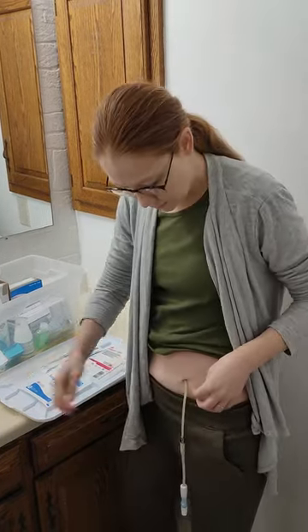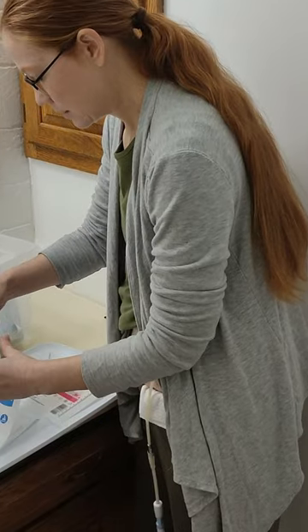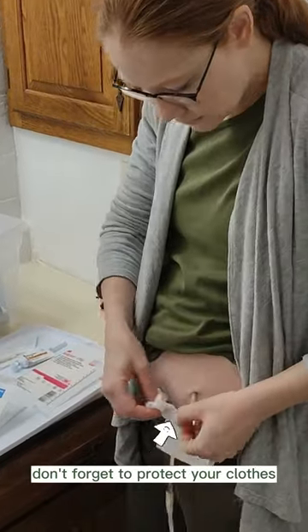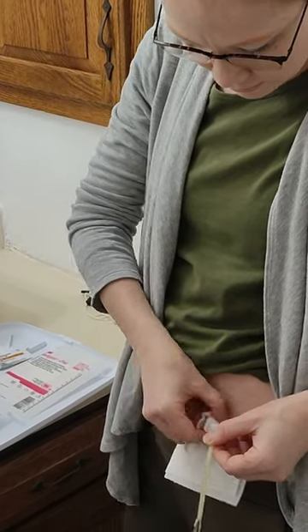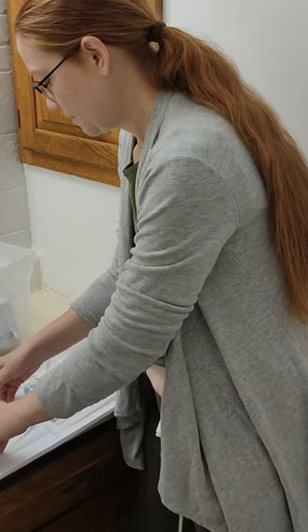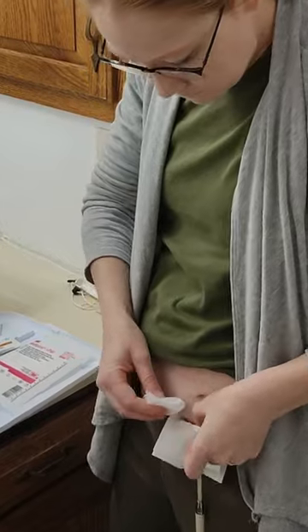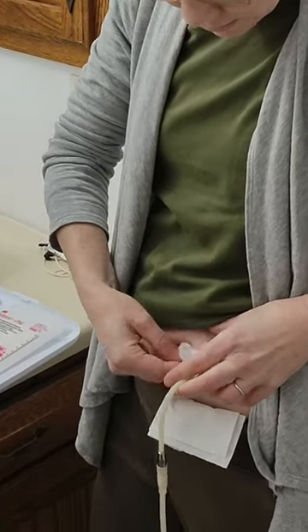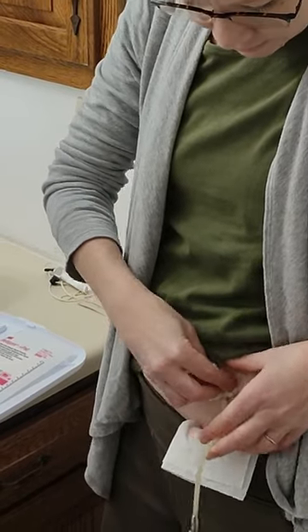I've been doing PD for about a year, so usually when you first get it it's gonna be red a little bit. I take the sponge and I wipe around the site. I go around the tubing, and I use both of the sponges. I kind of pull on it just a little to make sure everything is nice and clean.